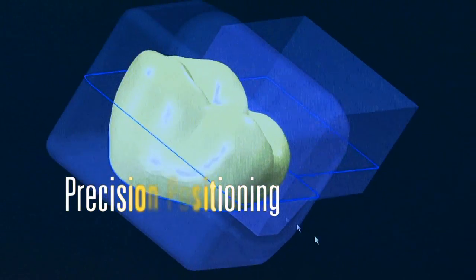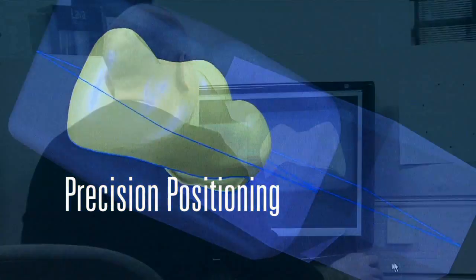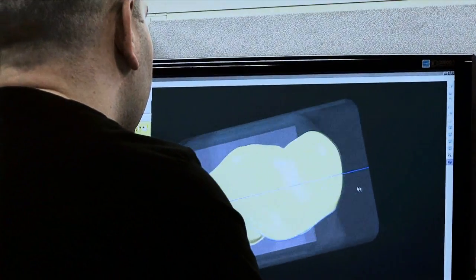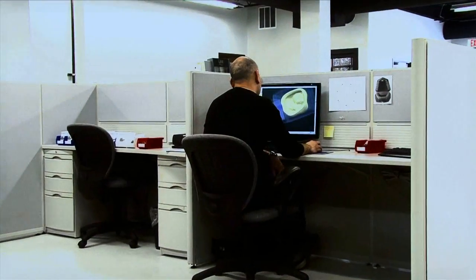Positioning of the digital design is critical and is a key component to achieving maximum strength and aesthetics for the desired final result.